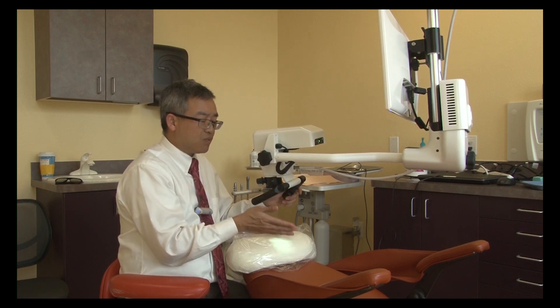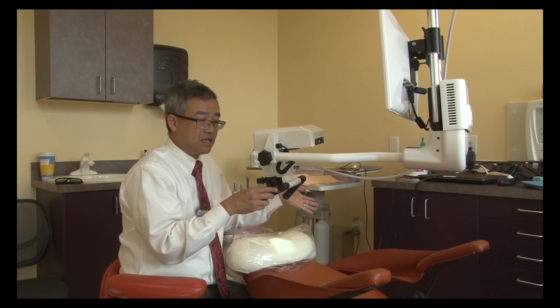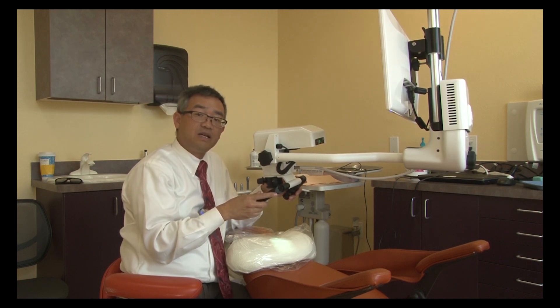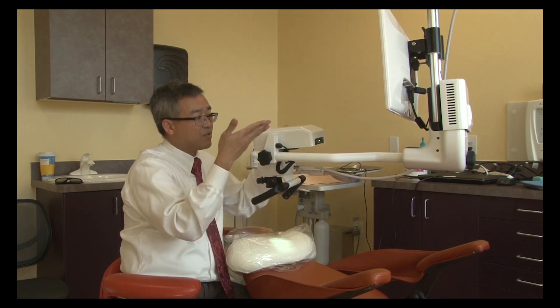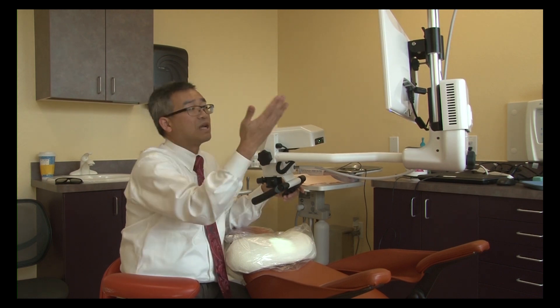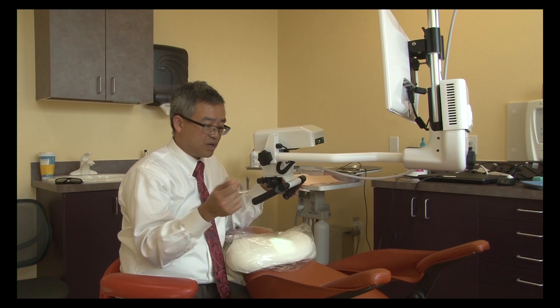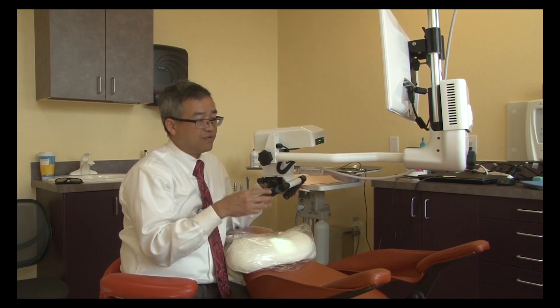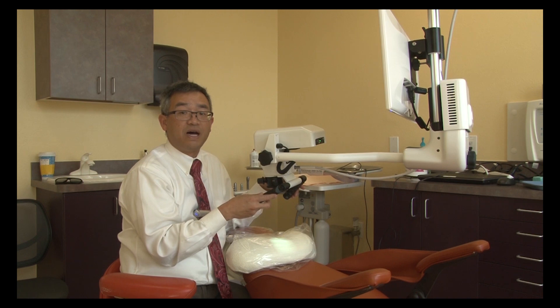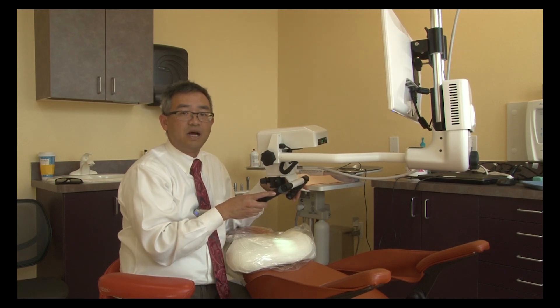Lighting — the lighting on this microscope is much easier on the eyes, both for patients, assistants, and clinicians. This is because we're no longer looking into binoculars with very high-intensity lighting; we're actually looking at the screen. The cameras in the pod reconfigure the image so we can look at the screen like normal instead of looking at highly lit areas. For comparison, we're talking about 15,000 lux in this case versus 150,000 lux — a lot less light onto our eyes. The strain on the eyes for everyone involved is much less than with a 2D microscope.